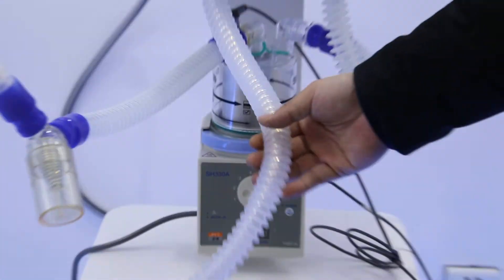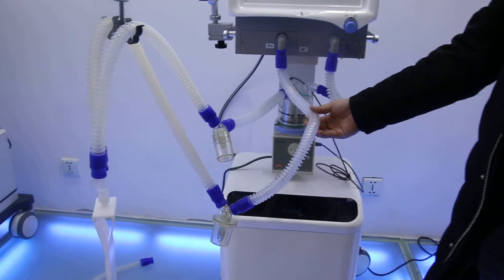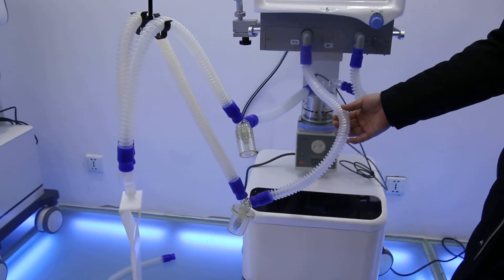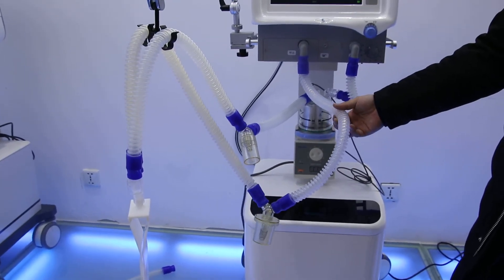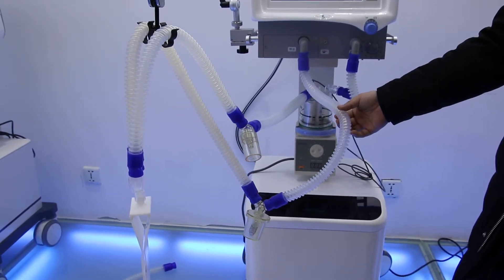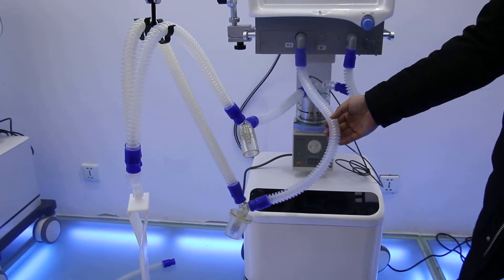For the pipeline here, all pipeline we are using, no matter for adult or children or neonatal, we are using the reusable one. So usually you can use it for a long time. Usually it can be used for three to four months.